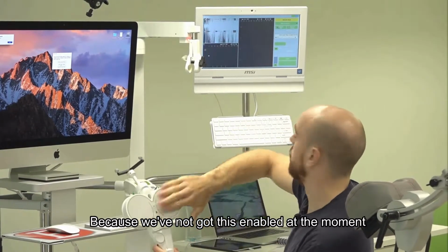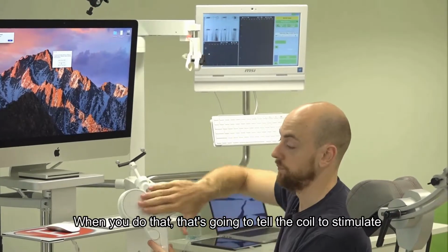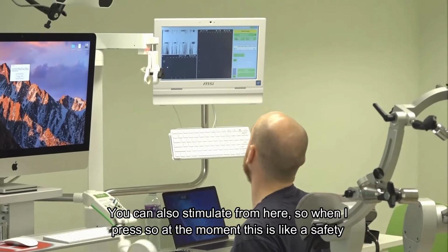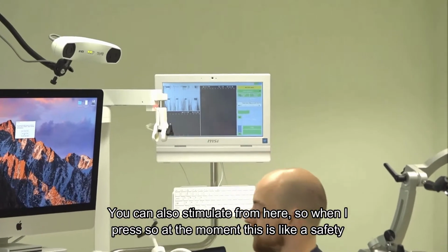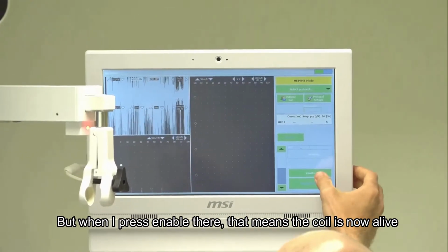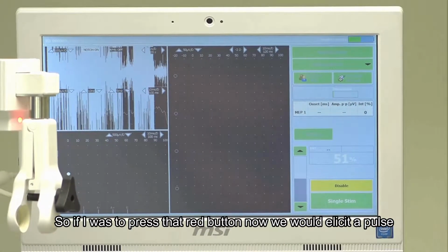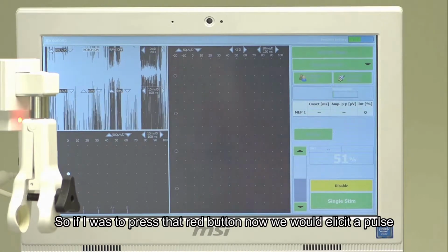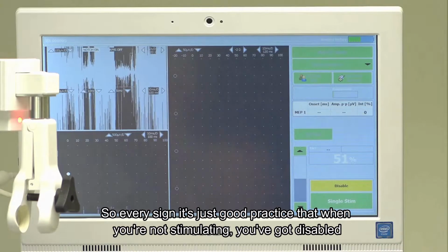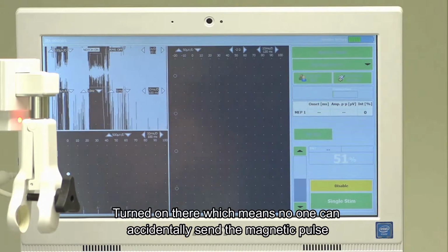Because we've not got this enabled at the moment, when you do that, that's going to tell the coil to stimulate. You can also stimulate from here. At the moment this is like a safety, but when I press enable there, that means the coil is now live. If I was to press that red button now, we would elicit a pulse. It's good practice that when you're not stimulating, you've got disable turned on, because it just means no one can accidentally send a magnetic pulse.